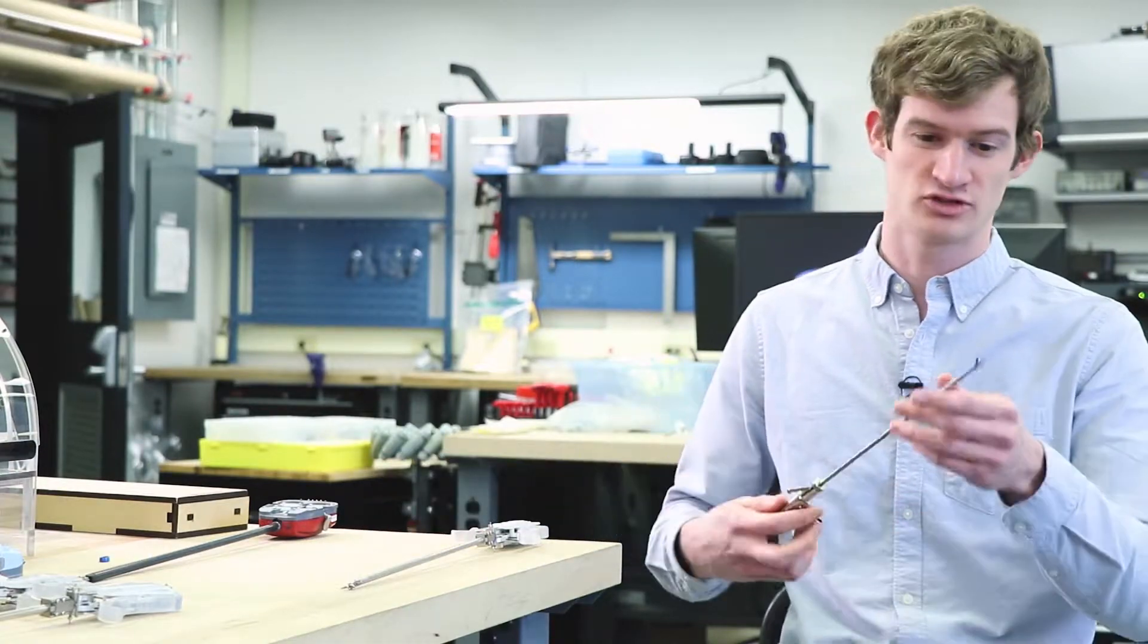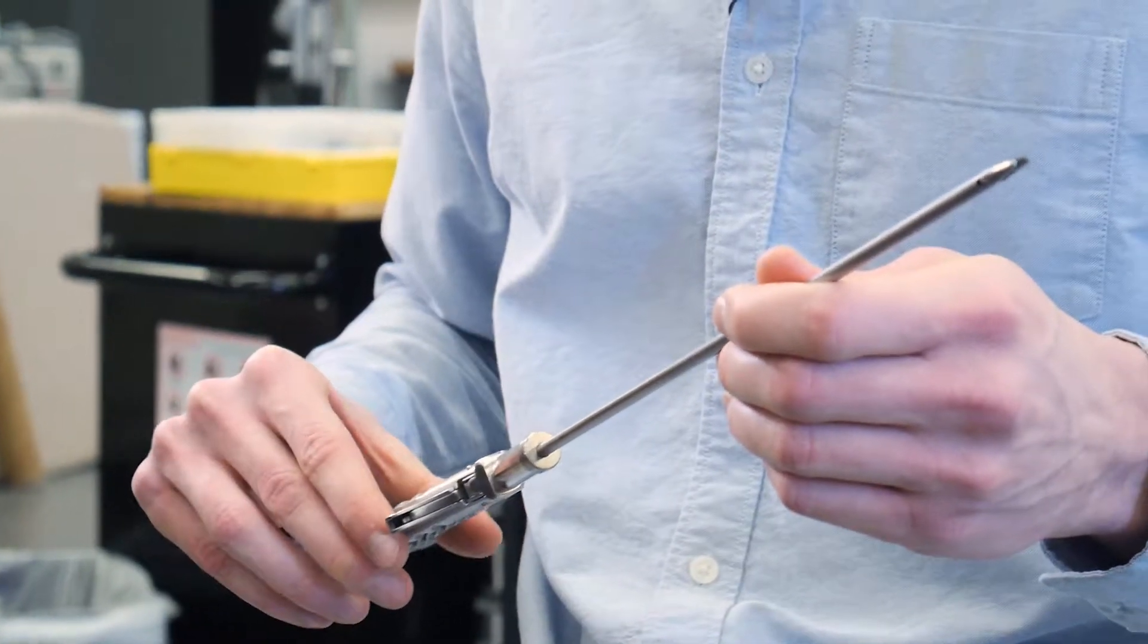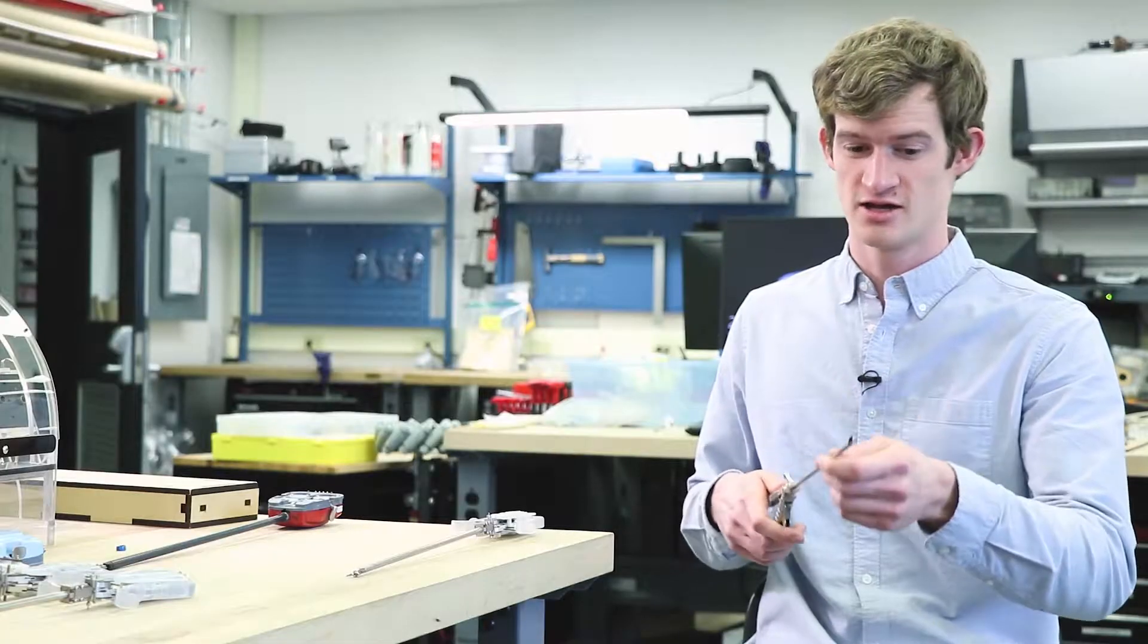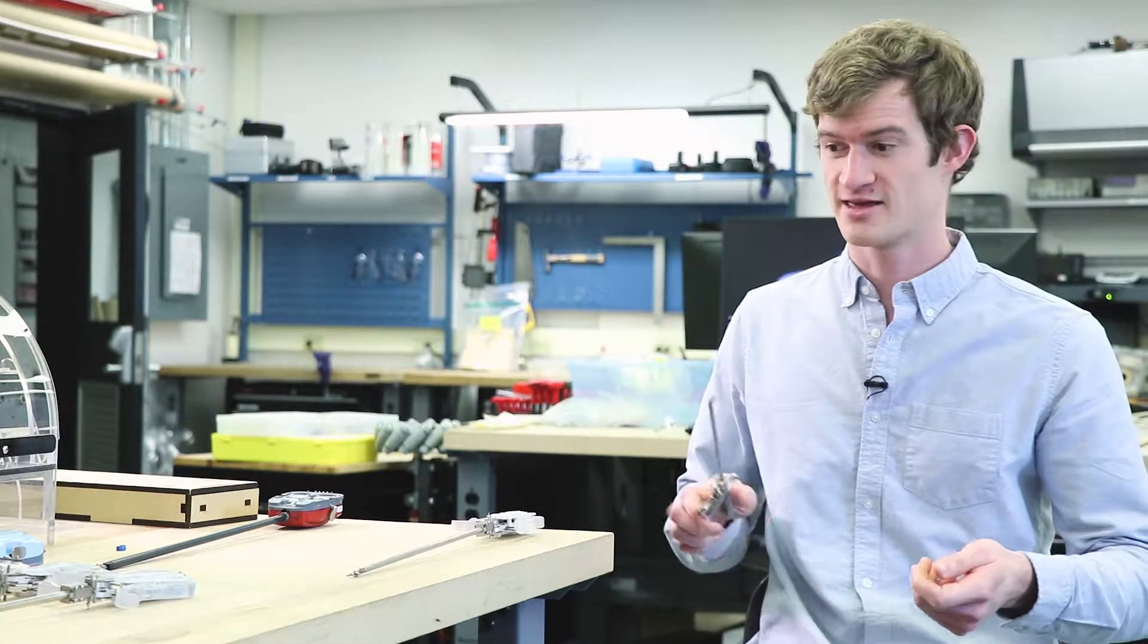Normal laparoscopic tools like this are really hard to use because they're just like a long rigid stick, and they're hard to do complicated suturing and things like that.